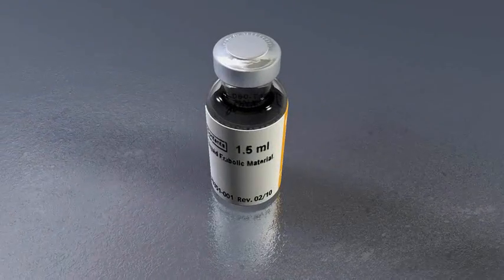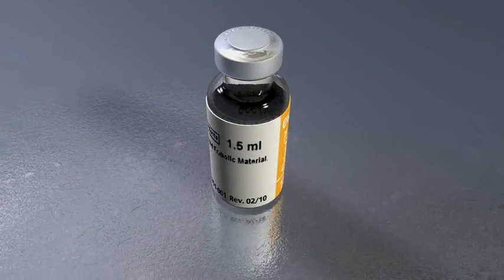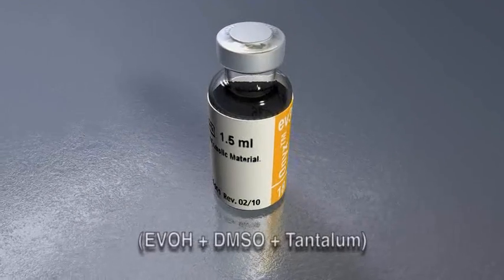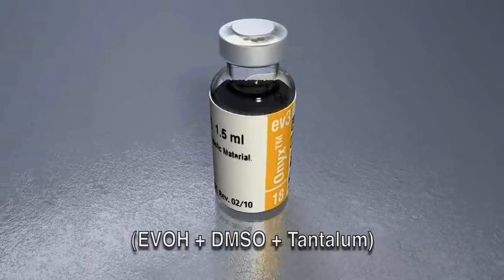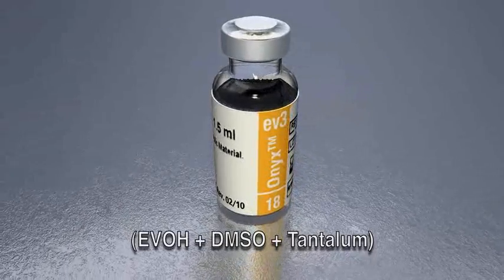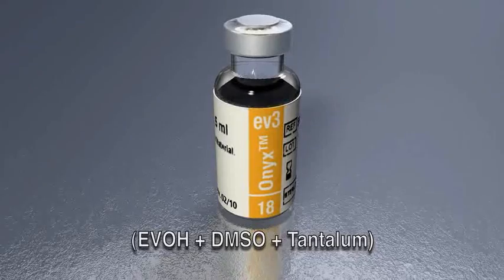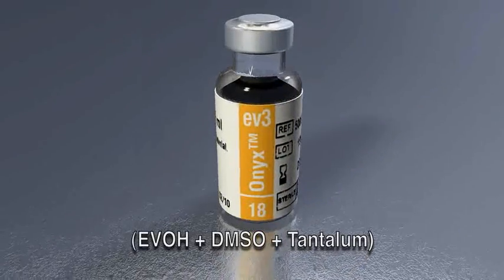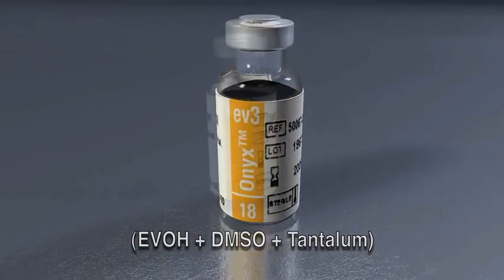Onyx is a non-adhesive liquid embolic agent comprised of ethylene vinyl alcohol copolymer, EVOH, dissolved in dimethyl sulfoxide, DMSO, and suspended micronized tantalum powder to provide contrast for visualization under fluoroscopy.